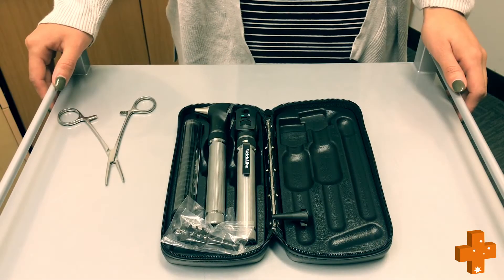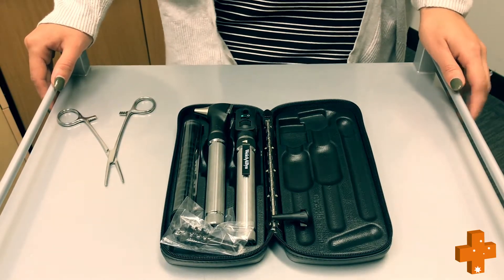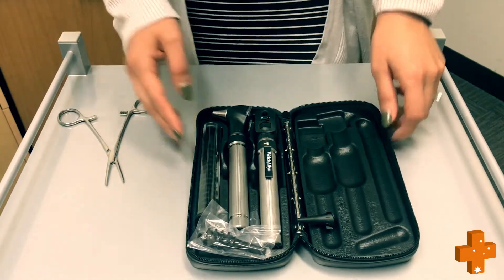From time to time, globes do require to be changed. As halogen globes require to be changed from time to time, please keep in mind that LED globes do have a 7 year replacement warranty.